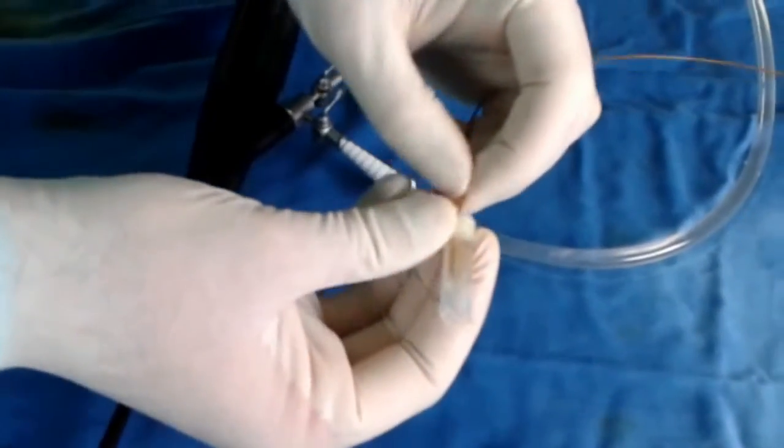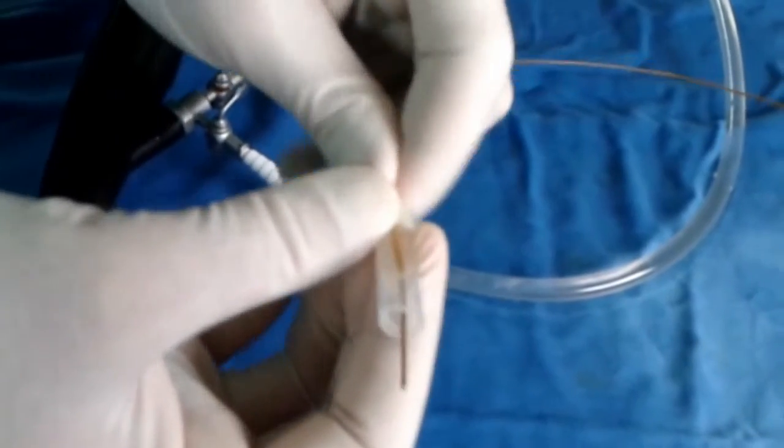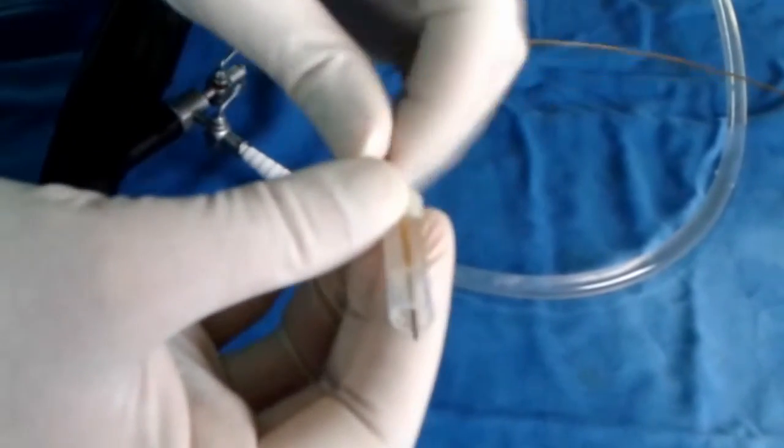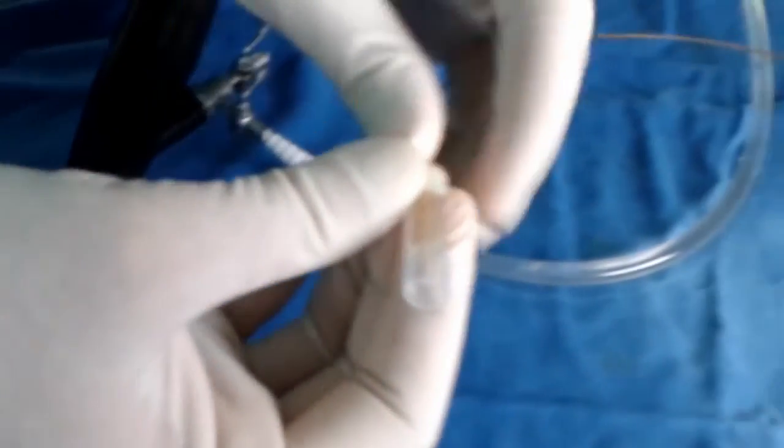Also, the rubber is so tight that the progression of the basket or guide wire is difficult. However, this limitation can be used to reduce the movement and secure the basket or the laser fiber.